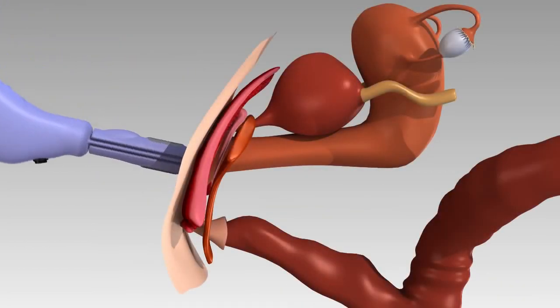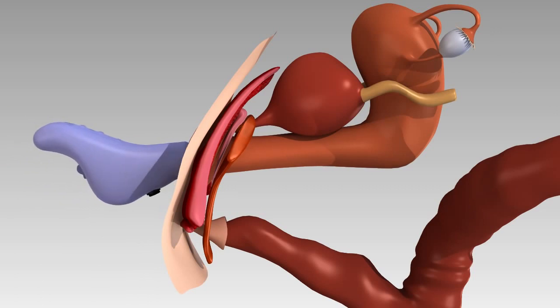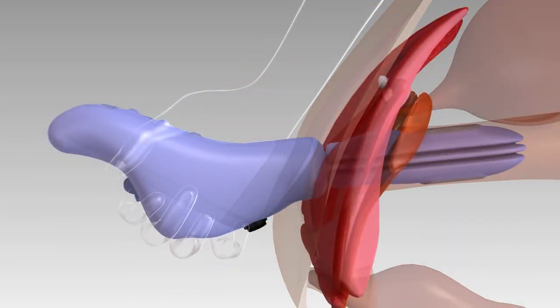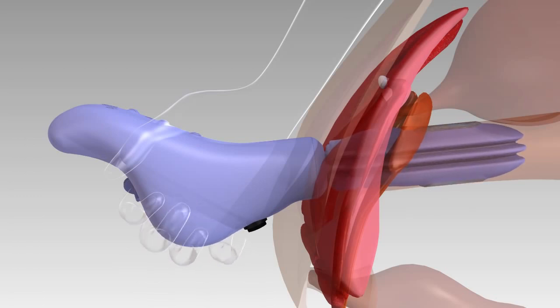Insert Apex into your vagina a minimum of four inches. Now, inflate Apex by squeezing the inflation bulb at the base of the device until it feels comfortably snug.